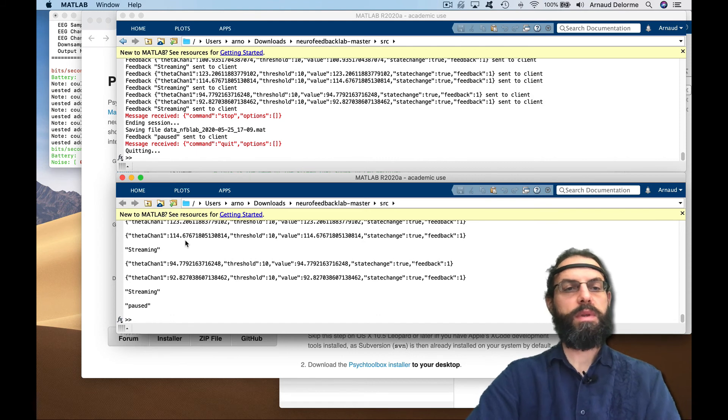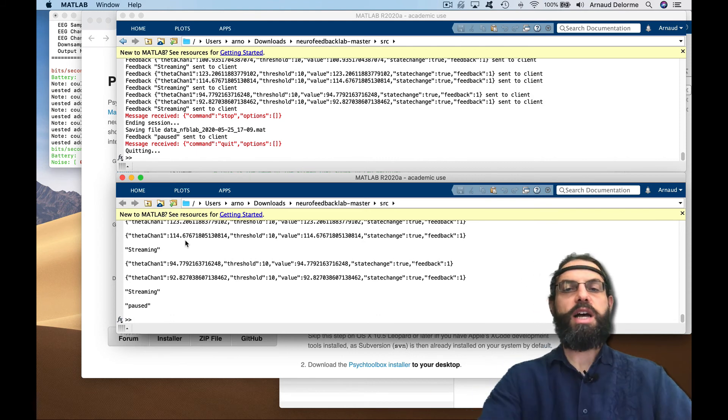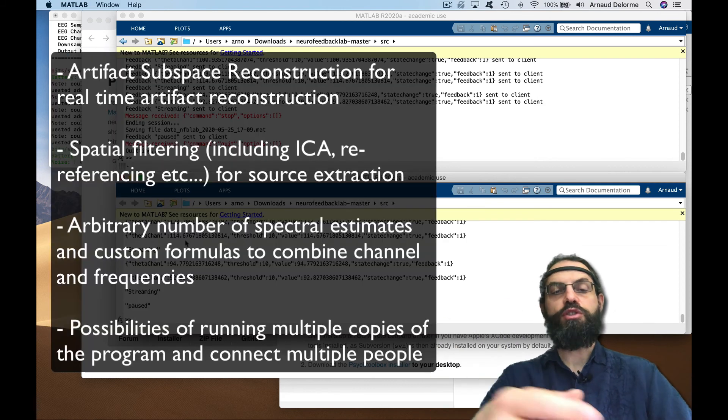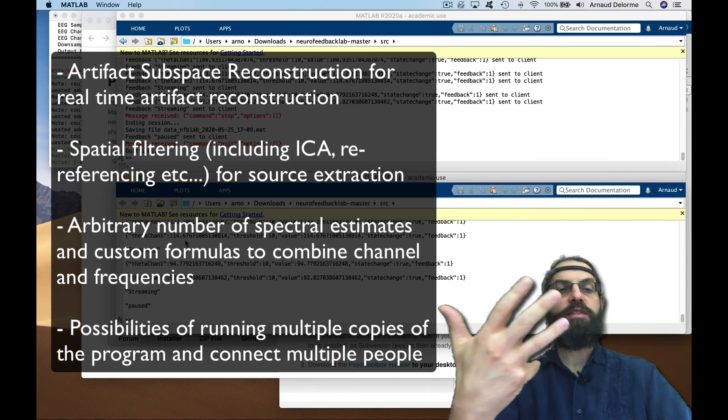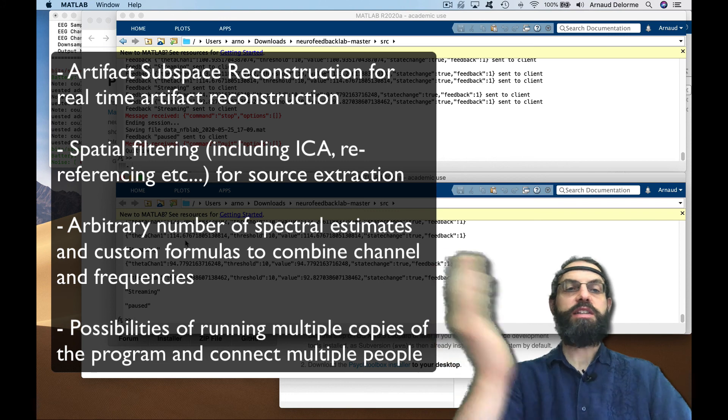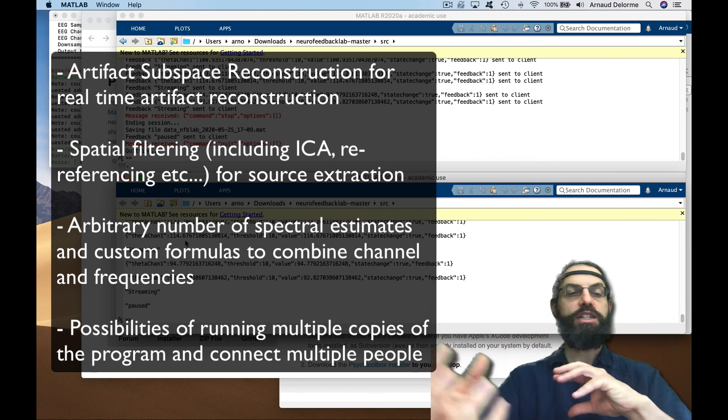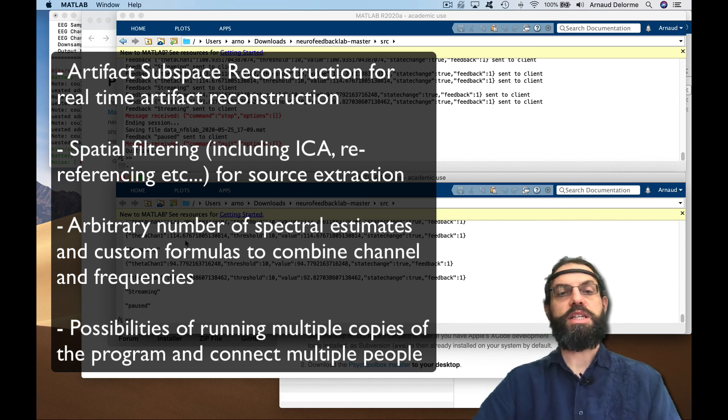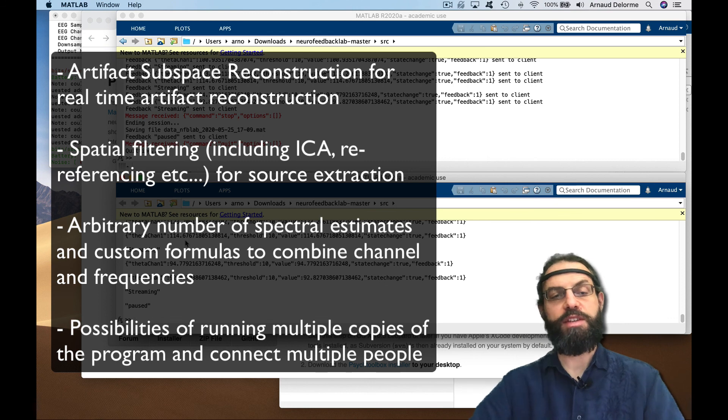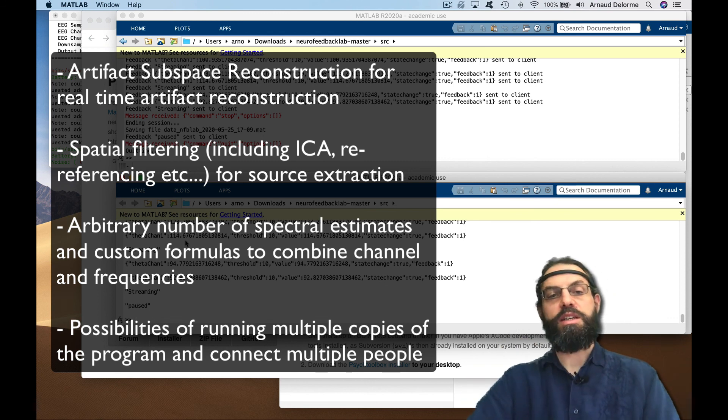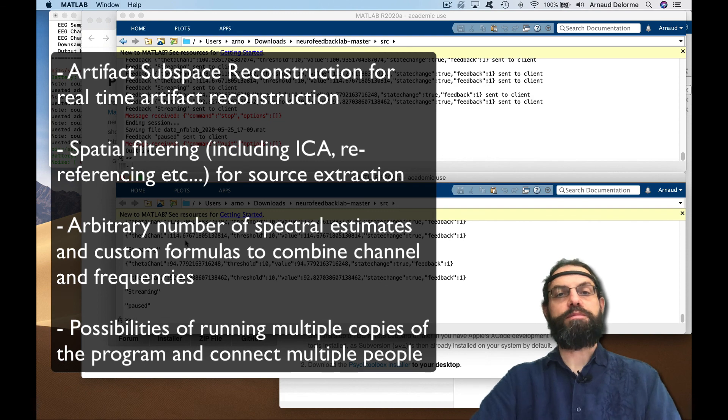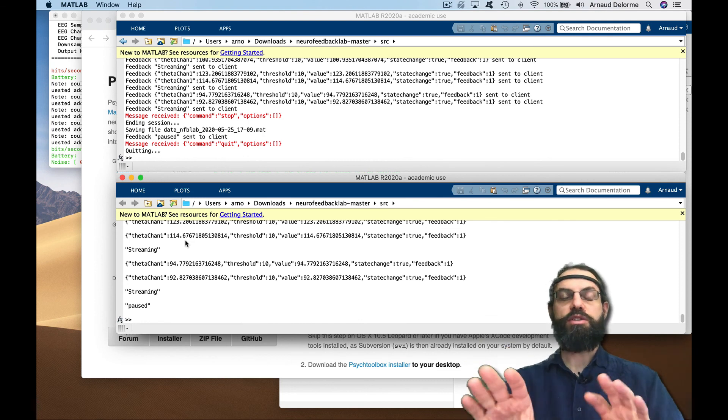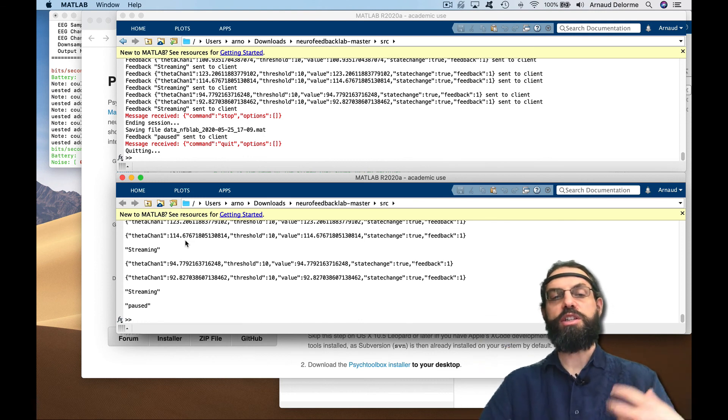Okay, and it's done. Again, these don't have to be on the same computer as long as the ports are open on the local network. Also, if you choose different ports, you can have five different people wearing different EEG headsets and serve them simultaneously, and possibly do interaction between people based on competition—who has the higher spectral value, things like that. There's a lot of possibility with this software. That's the end of this demo. In the other video I'll describe in more detail all the parameters because there's many parameters you can change and what you can do with this software.